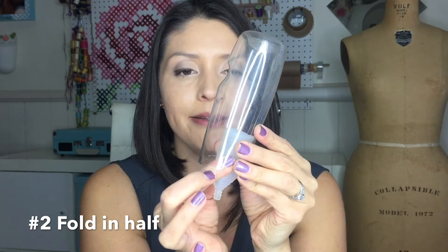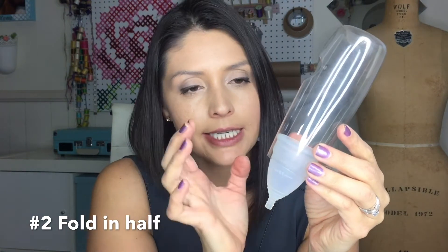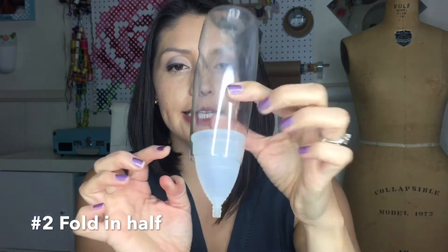The reason why we do that is to make sure it's in place, so once you release it will open up. Just to make sure it's completely sealed, I'll go ahead and move the cup around and add a little air in to make sure it's completely sealed.